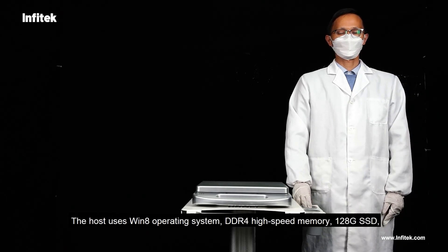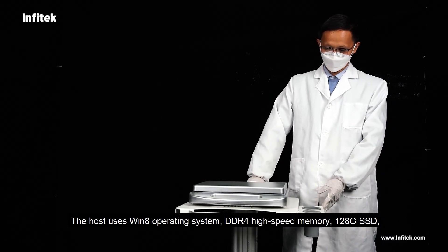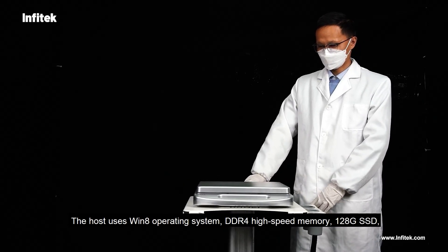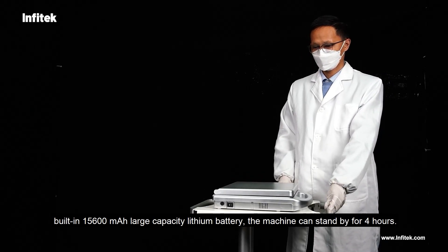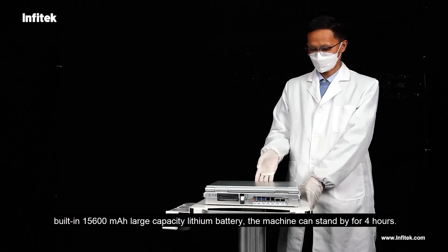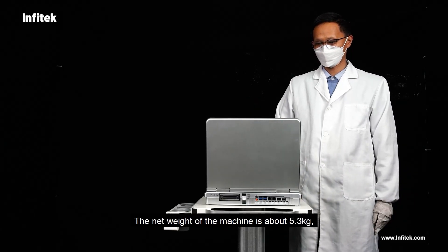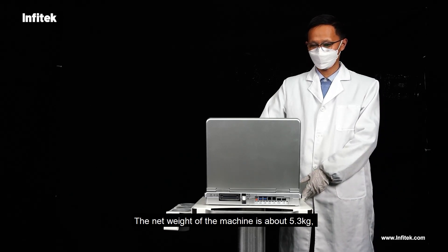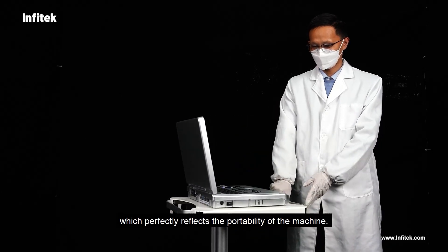The host uses a Win-8 operating system, DDR4 high-speed memory, 128 GB SSD, and a built-in 15,600 mAh large-capacity lithium battery. The machine can stand by for four hours. The net weight of the machine is about 5.3 kg, which perfectly reflects the portability of the machine.